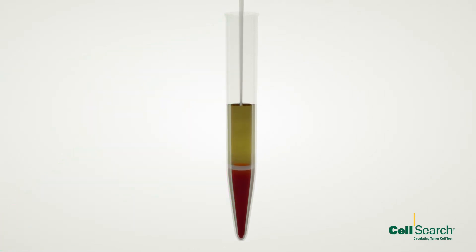First, the system detects the red blood cell layer and aspirates the plasma to waste, then resuspends the sample in buffer.